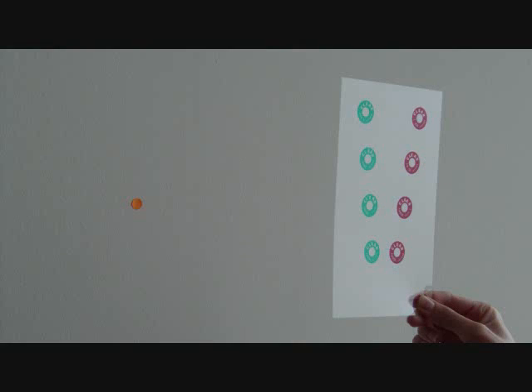If you are not able to fuse or bring together the red and green circles, use a spot on a white wall instead of the pencil tip to make fusion easier.